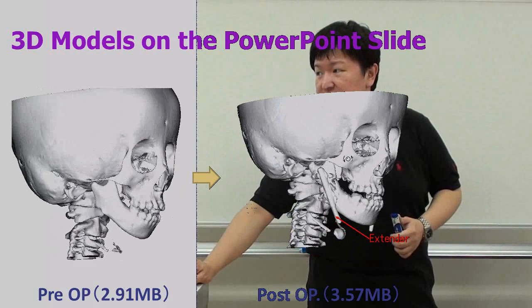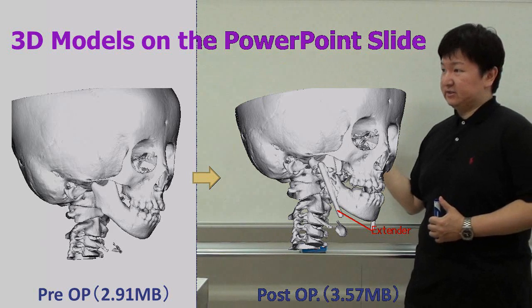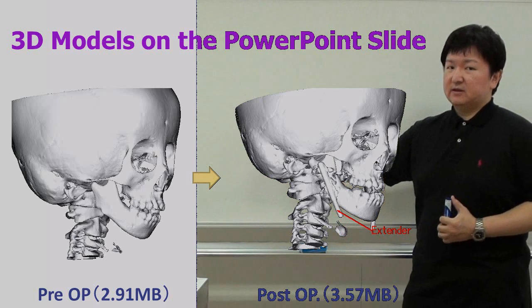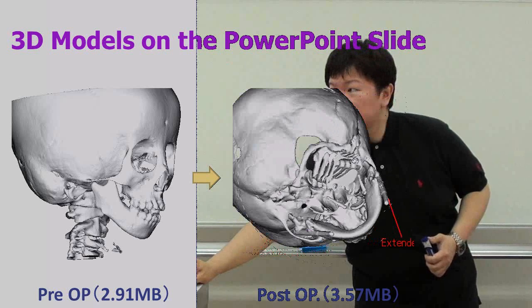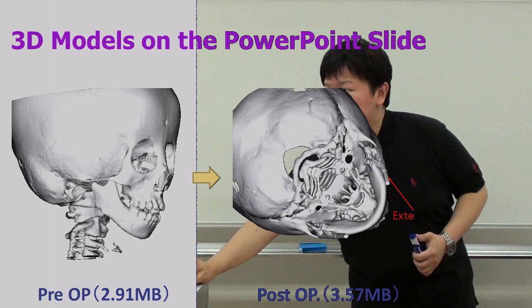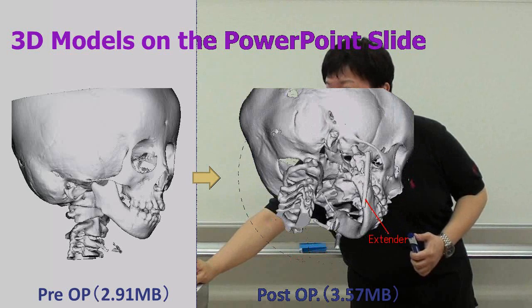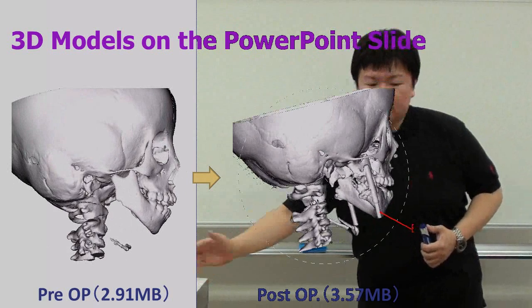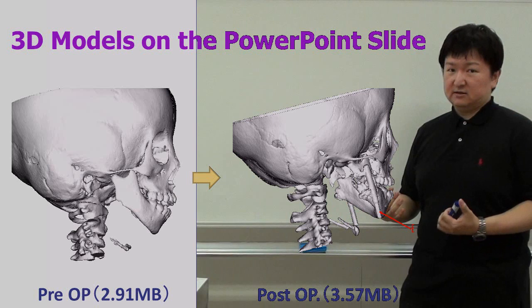This is the patient's real data. The left side is before the operation and the right side is after the operation. The file size is very small, and you can see the change before and after operation — you can rotate freely. The 3D annotation on the 3D model can be seen like this.